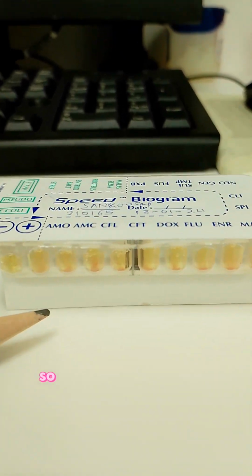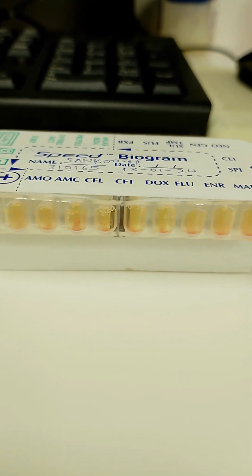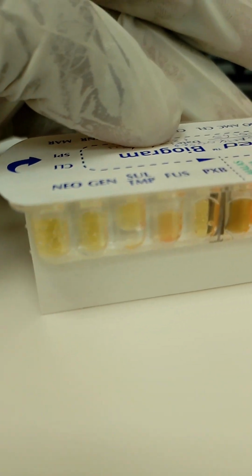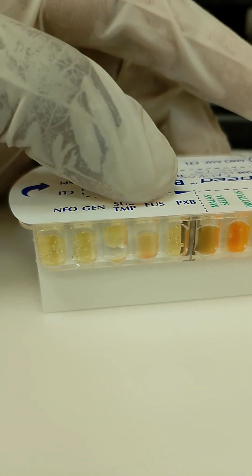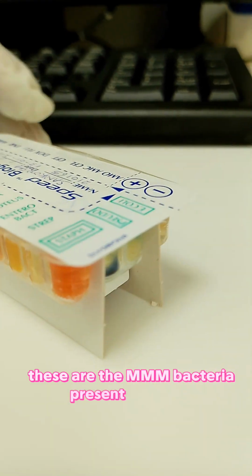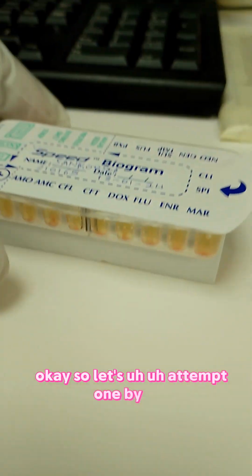This one is a column for antibiotics, until this part. So this is all antibiotics. And then this one here, these are the bacteria present in this sample. So let's attempt them one by one.